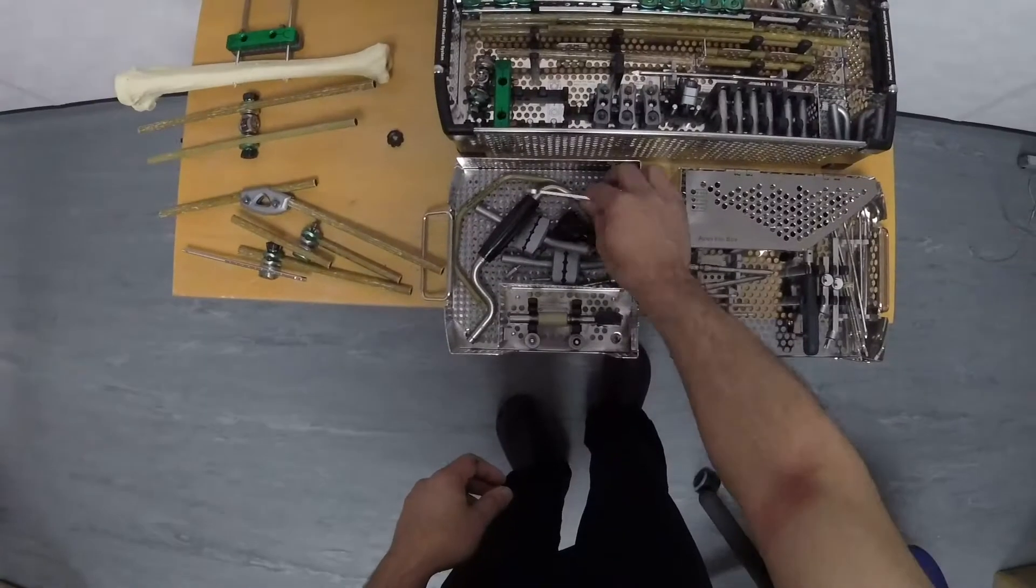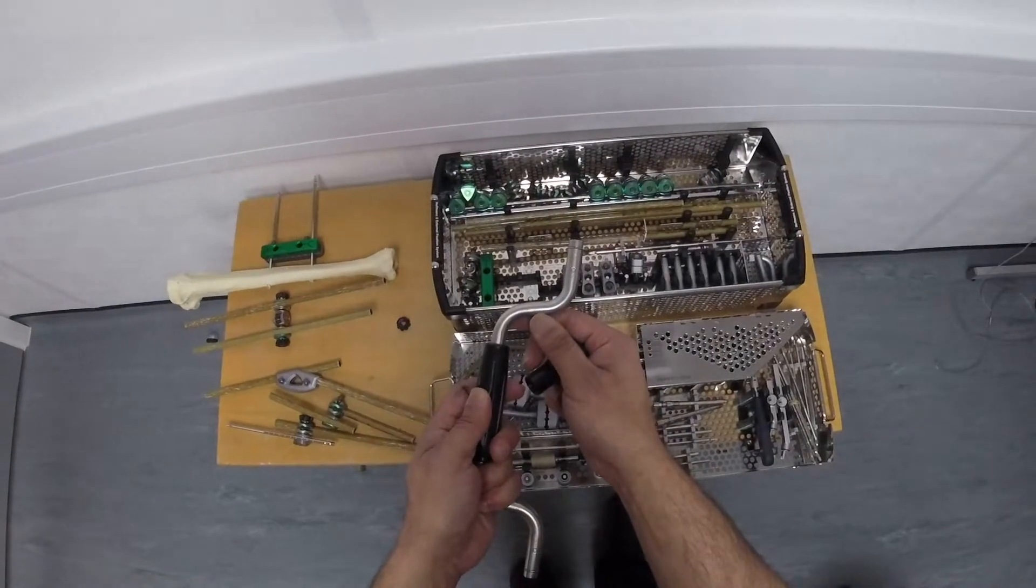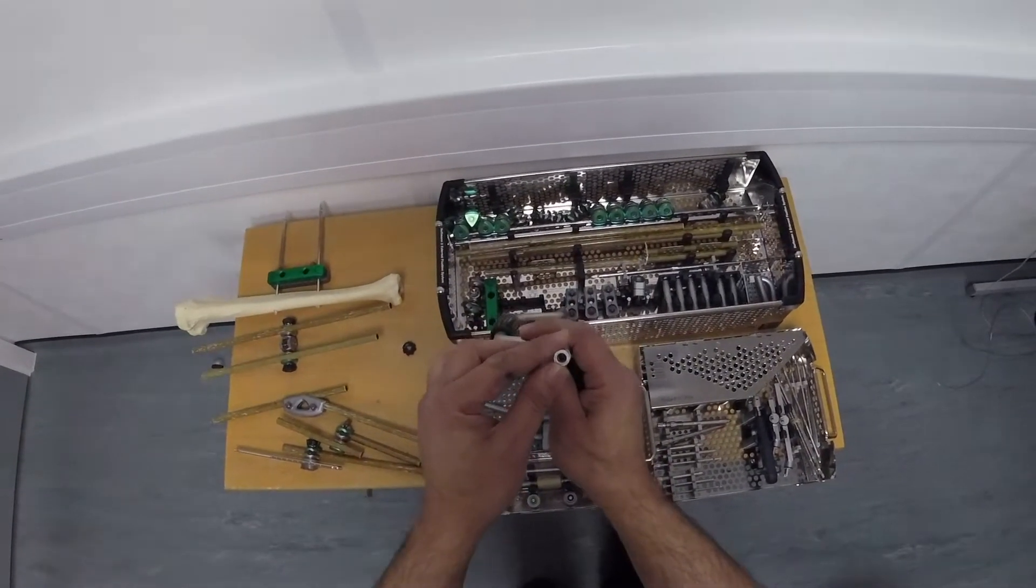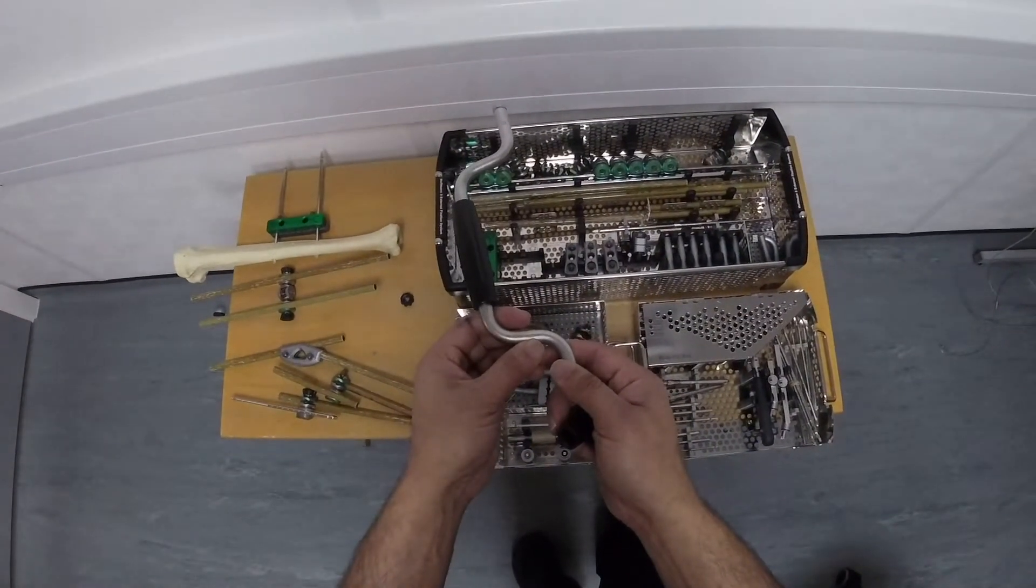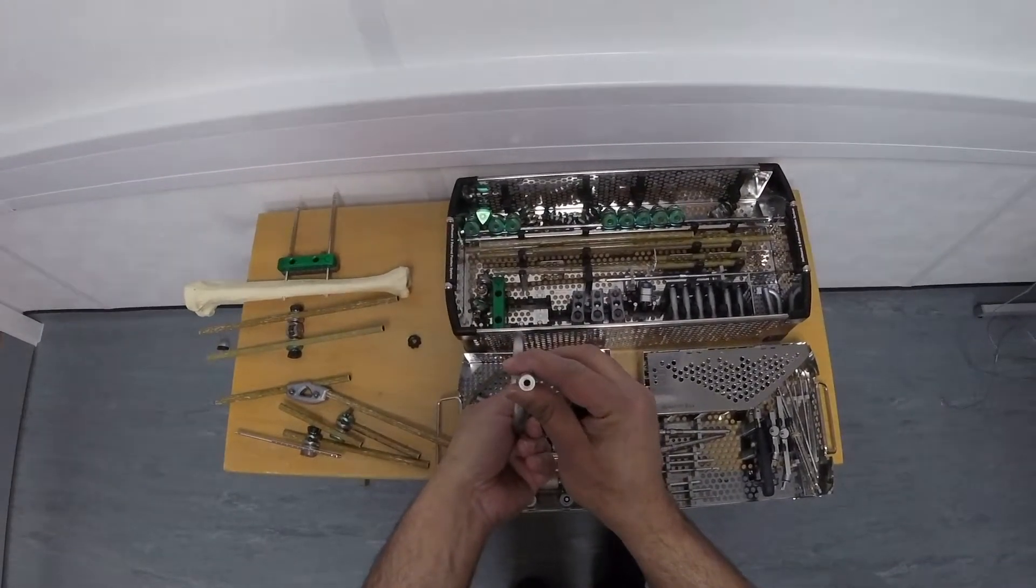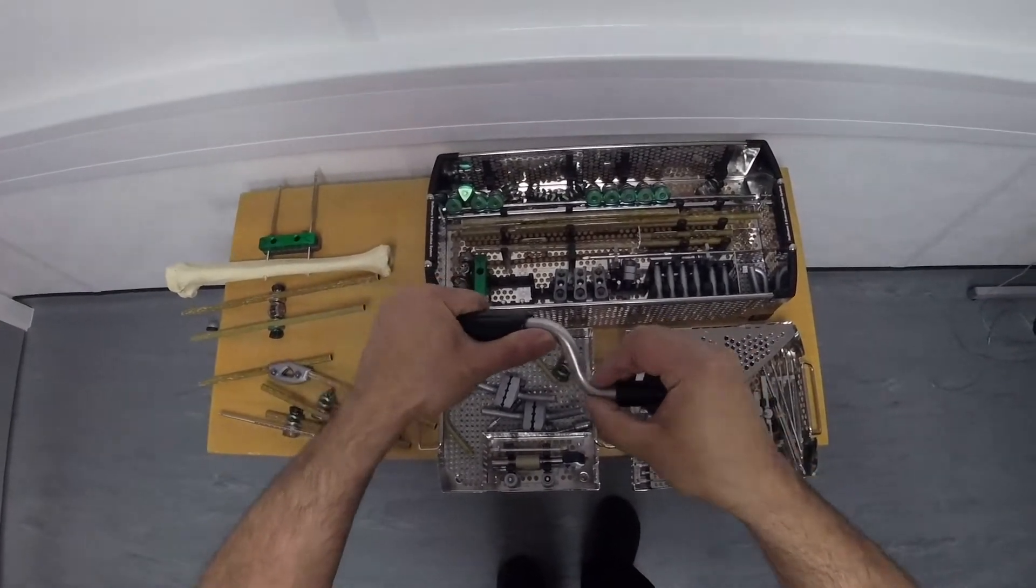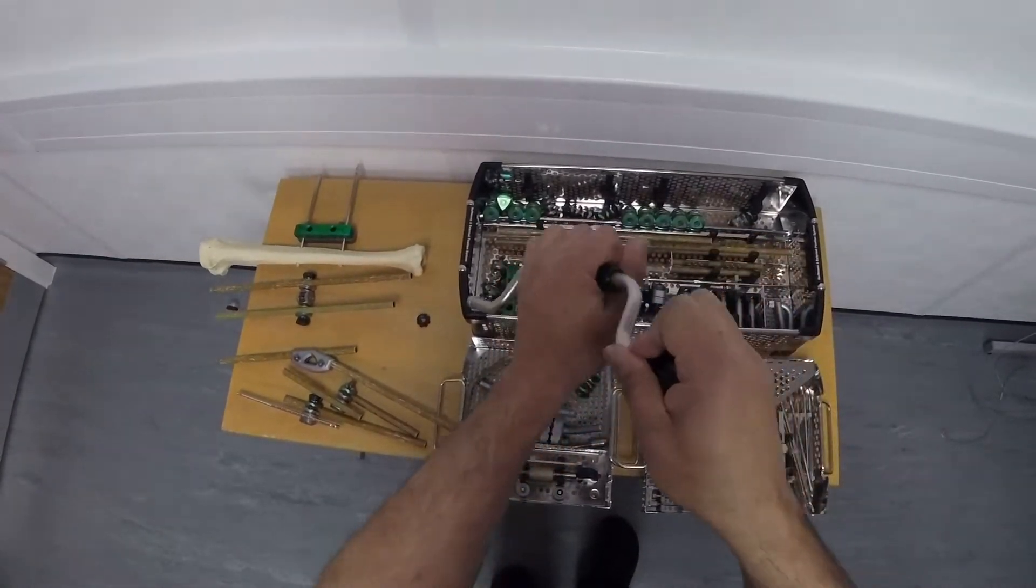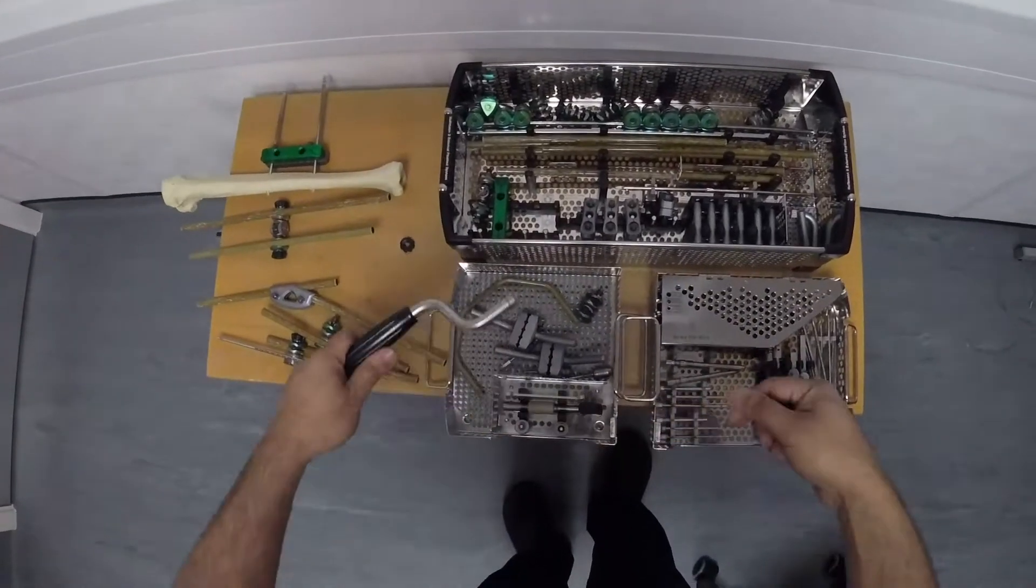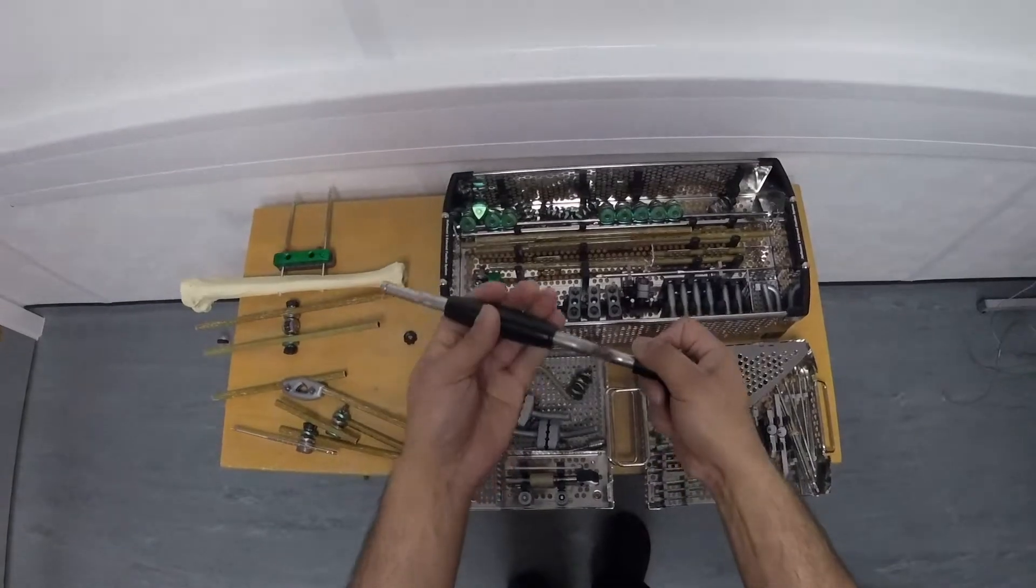Also in this set is a brace. The brace is marked here as 5 and 6. That means the aperture here will take a 5 or 6mm apex pin. On this side, it's marked 3 or 4. So the aperture here will take a 3 or 4mm apex pin. If I was putting the apex pin in, if it was a 3 or 4, I'd put the handle on that side and I'll be able to rotate it like that in order to put in my pin. If I wanted to put in a 5 or 6mm pin, I'll put the handle on the other side.